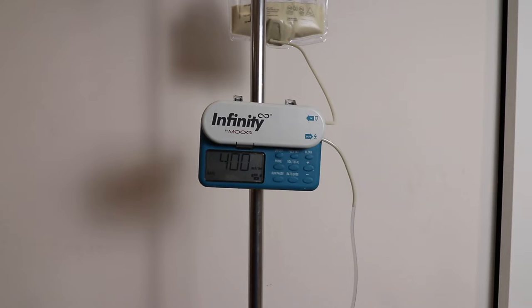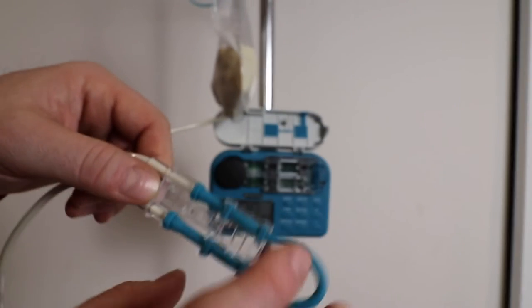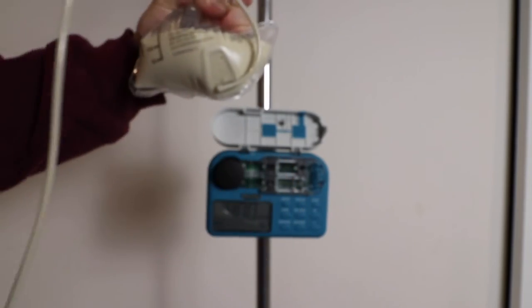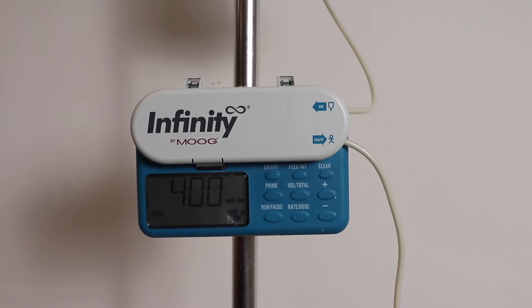There's one other way to prime the line which I usually do — it's a little faster, a little trickier, but really not that hard at all. Before you lock the line in place, when it's just hanging freely, you can see this side has a little teardrop on it. You basically squeeze the bag so there's pressure in it, then squeeze that teardrop together — just put a little pressure where that teardrop is. Once you squeeze that little teardrop while putting pressure on the bag, it quickly goes through the line and primes it in half the amount of time.